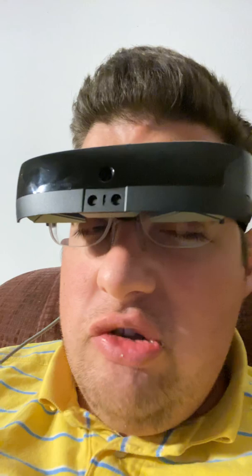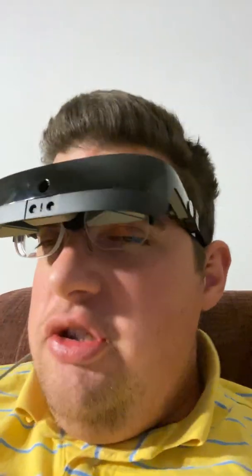There are a lot of videos on YouTube about the glasses, but they're mostly brief snippets. I want to give you a rundown of how they look and work. I know I did one previously, but it wasn't the greatest. I have a new camera setup, so I'll be glad to share what eSight 3 is and how it looks and works.